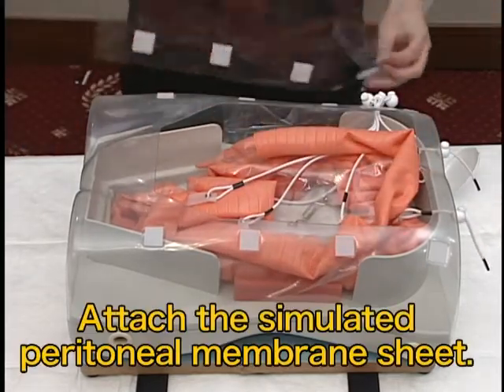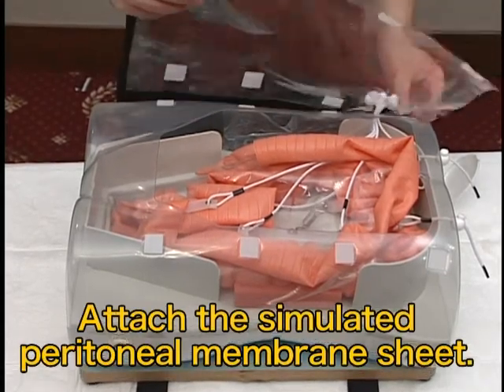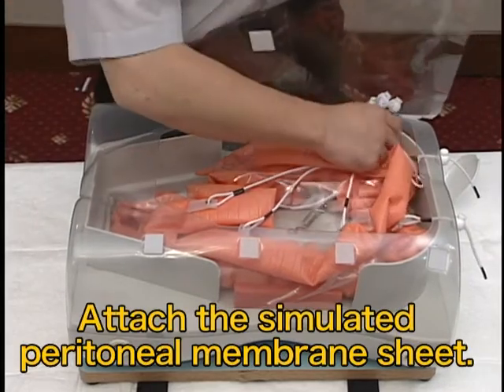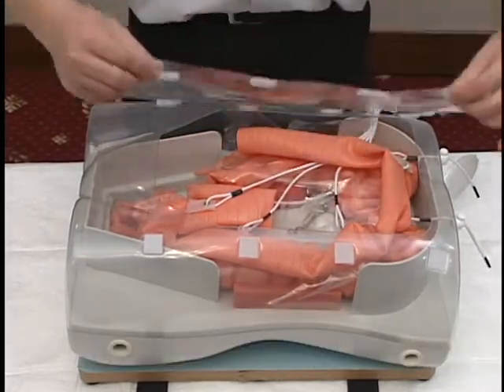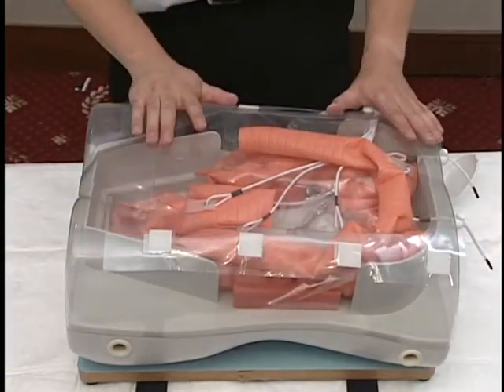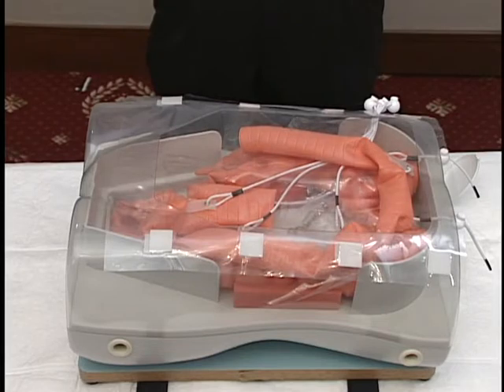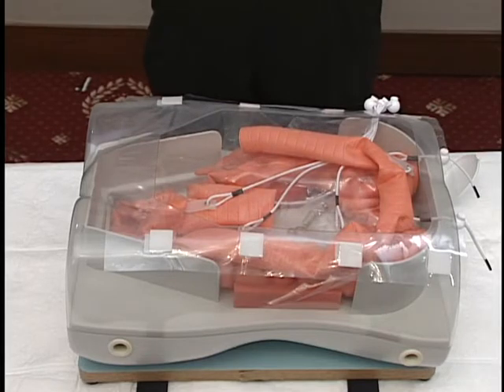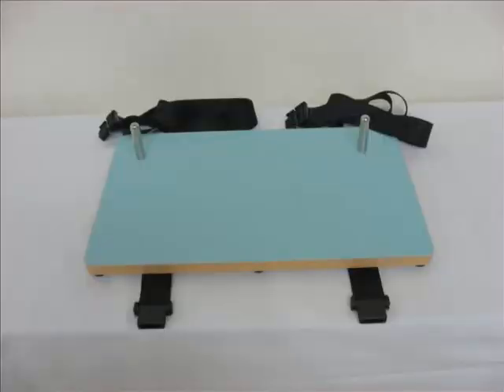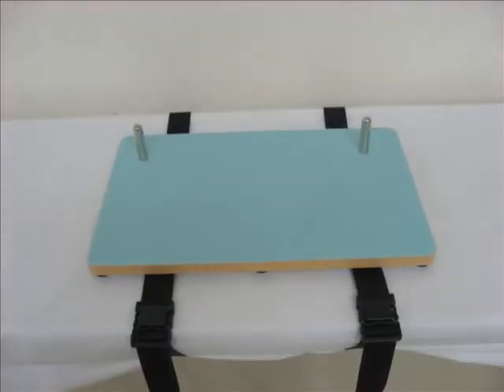Pass the round stopper through the hole in the simulated peritoneal membrane sheet. When securing the simulated peritoneal membrane sheet in place with hook and loop fasteners, pull the rubber straps of the intestine and align the positions of the round stoppers. This completes the application of lubricating jelly and assembly of the intestine. Wrap the belt under the table, insert it in the buckle, and pull tightly.